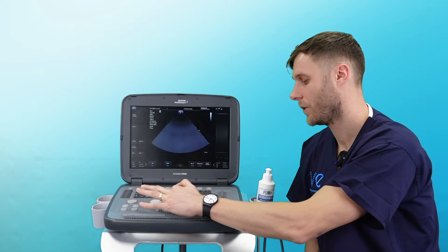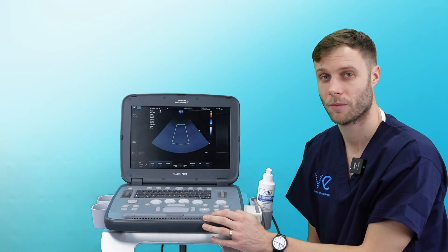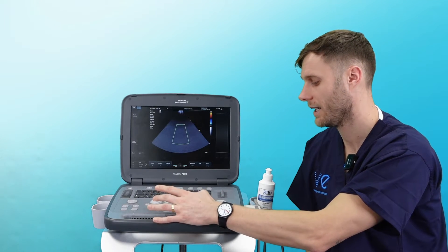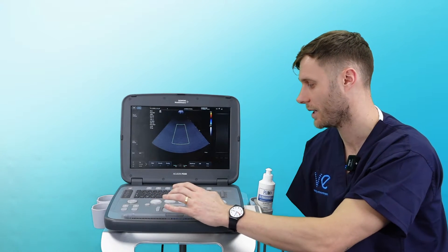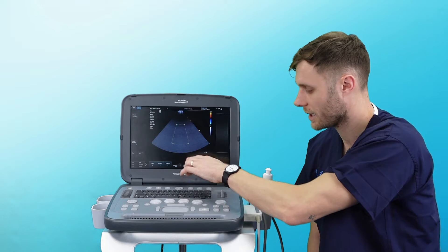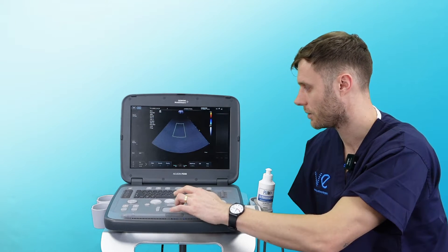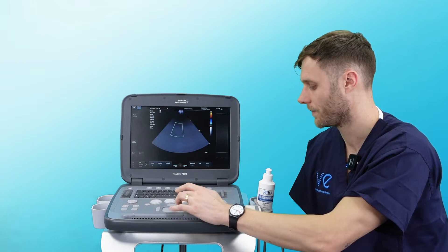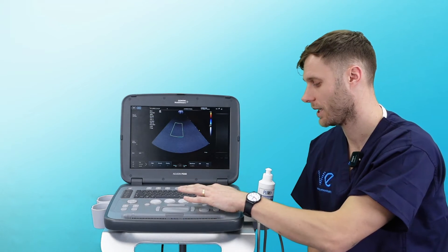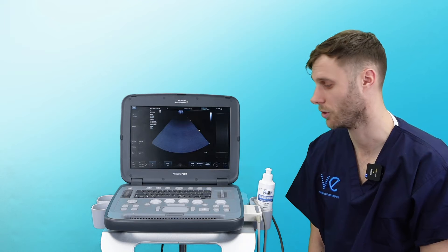We have our different imaging modes. If I hit the C button, that will bring up our color box. I can then click either left or right near the trackpad — size is highlighted in green so I can adjust the size, and I can click again to adjust the position. Once I'm happy and I want to get my color off, just hit 2D — 2D is always your reset button to go back to your normal scanning.